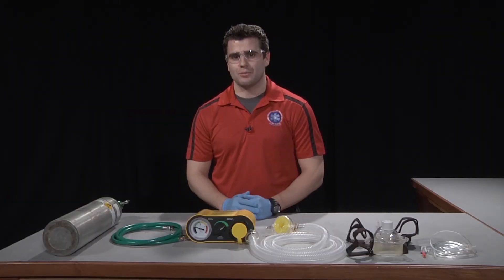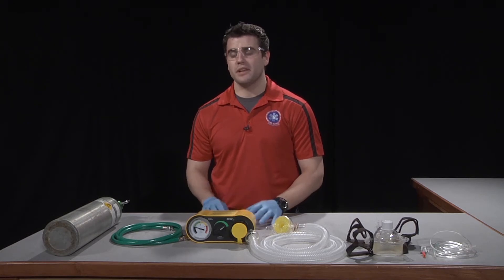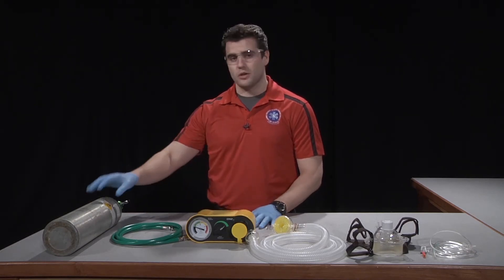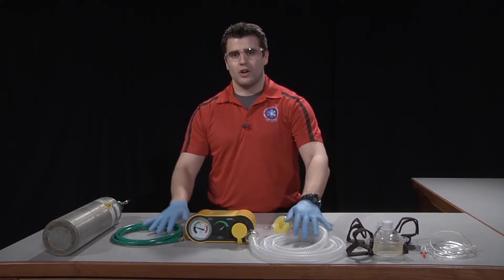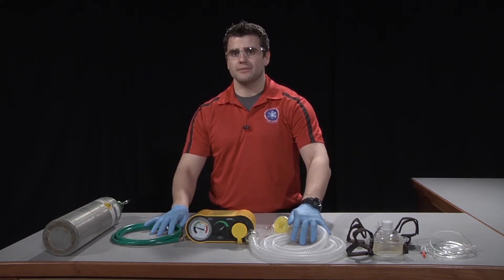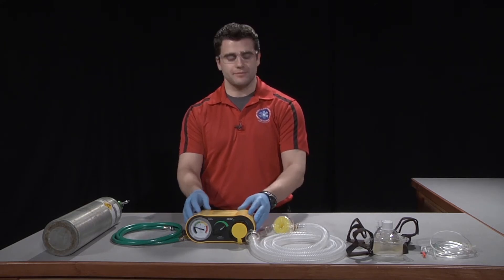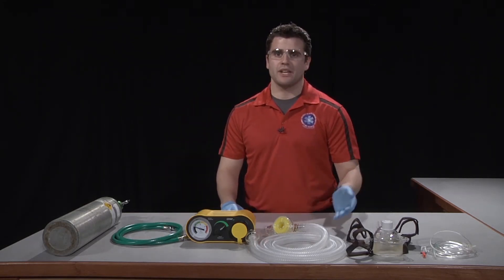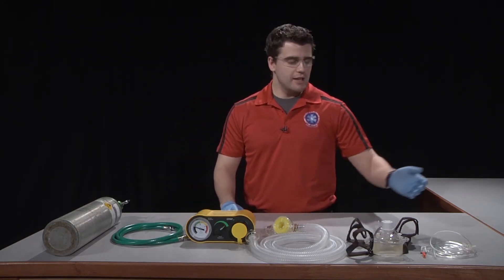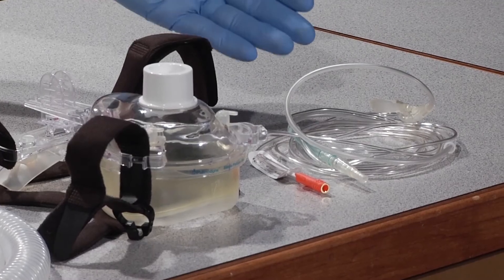Now we're going to gather and assemble our equipment for CPAP. The equipment that we'll need is an O2 supply, hoses and tubing, a CPAP machine, our CPAP mask with head straps, and our ETCO2 nasal cannula.